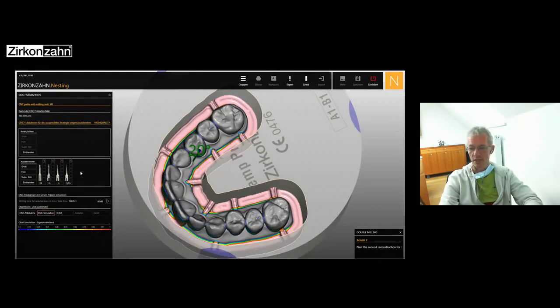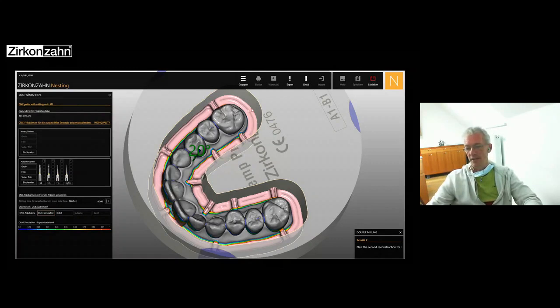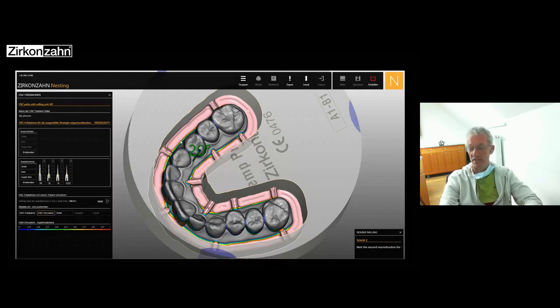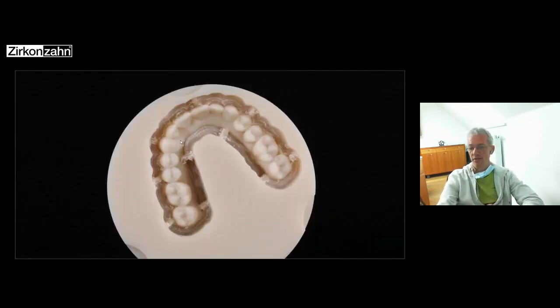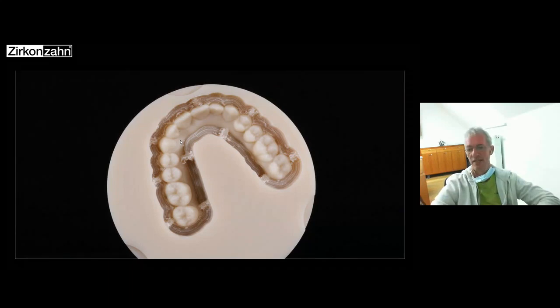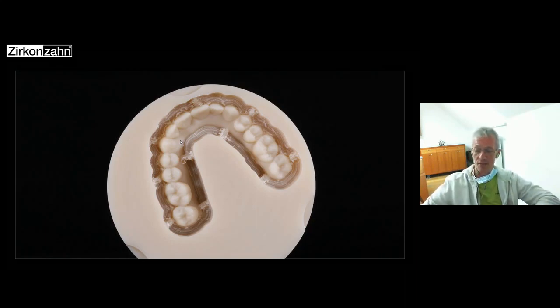We save it in that position — I named it here as part one — and start a CAM calculation, choosing high quality and also including the 3R for a faster milling workflow. When we take a look at the CNC passes, we can see that only one side is calculated — that's completely normal because double milling means we do something in two steps. The first step of double milling is that we calculate and mill just one side: the anatomy part is milled from the occlusal view down to the placement of the connectors. Once this is ready-milled, around 60 to 70% of the structure is done.